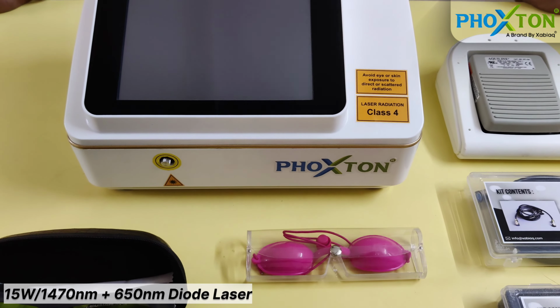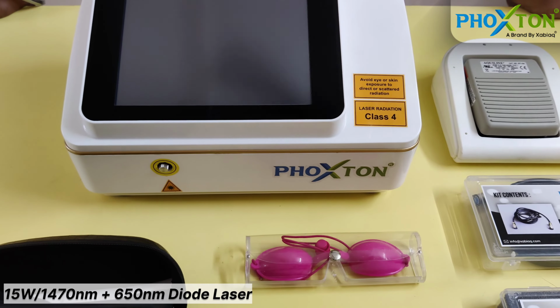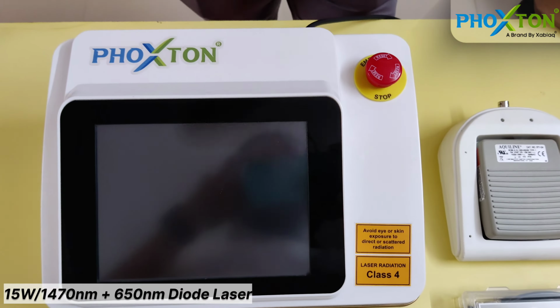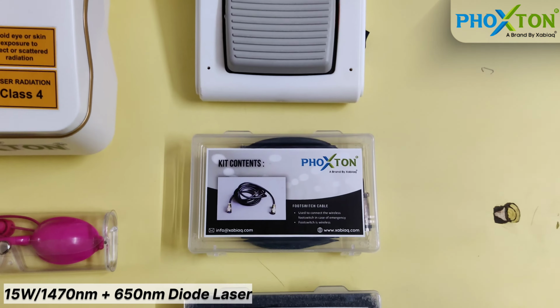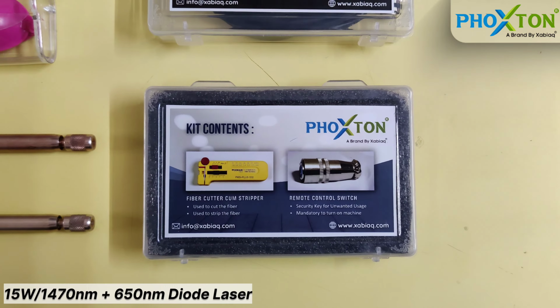Hello everyone, I would like to show our machine, the Phoxton diode laser, 1470 plus 650 model. This is the main unit. You can see here is the emergency stop. This is our wireless foot switch. Here is the foot switch cable. This is our fiber cutter cum stripper.